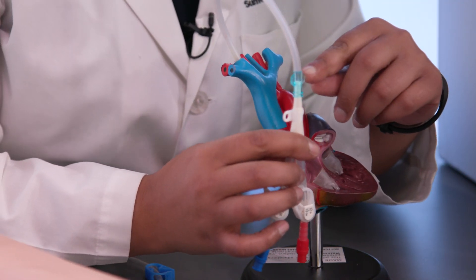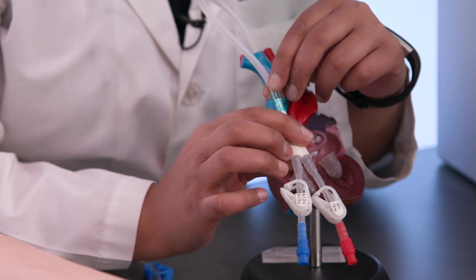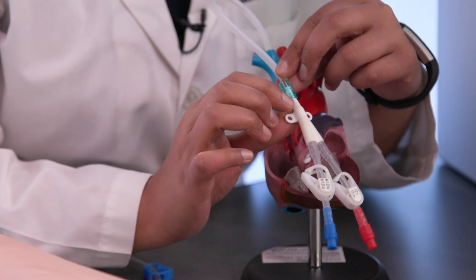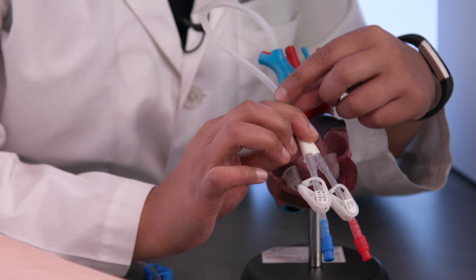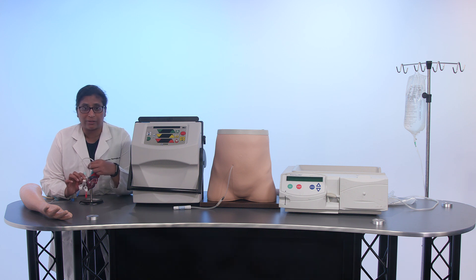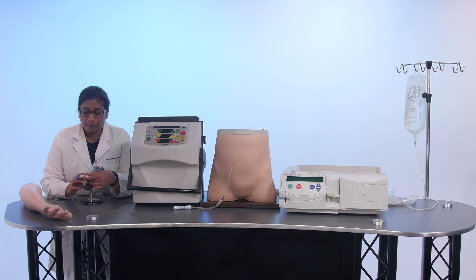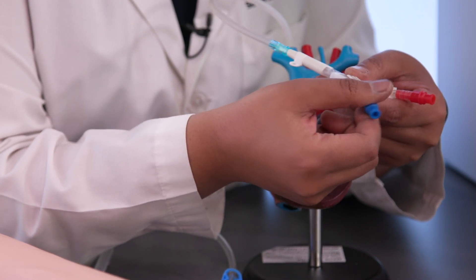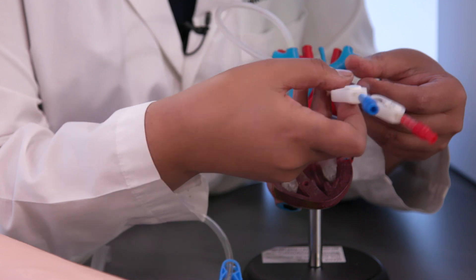Looking at the catheter model, the blue piece represents the portion that's always outside the body, just under the skin surface. These catheters are typically tucked in underneath the collarbone, so you can't see it under your shirt. However, it is a large portion that can get caught on things and can get infected. Because so much is outside the body, we are careful about not getting it wet — you really can't get this catheter wet when showering or bathing, and you cannot swim. Dressings are changed by nurses at each dialysis treatment. The catheter has two ports; during treatment the nurses remove caps and hook them up to the dialysis lines, then replace the caps at the end.